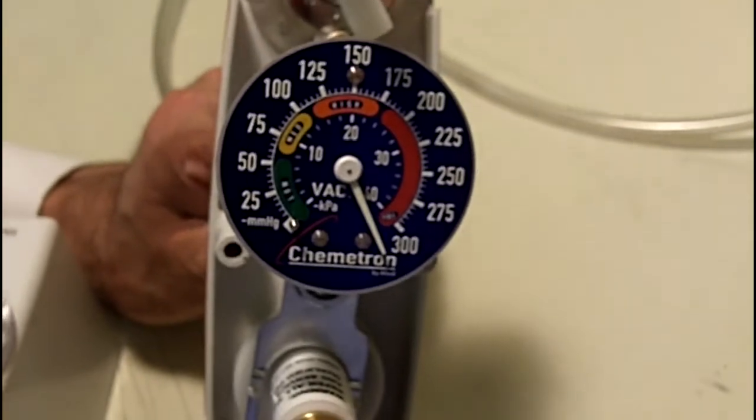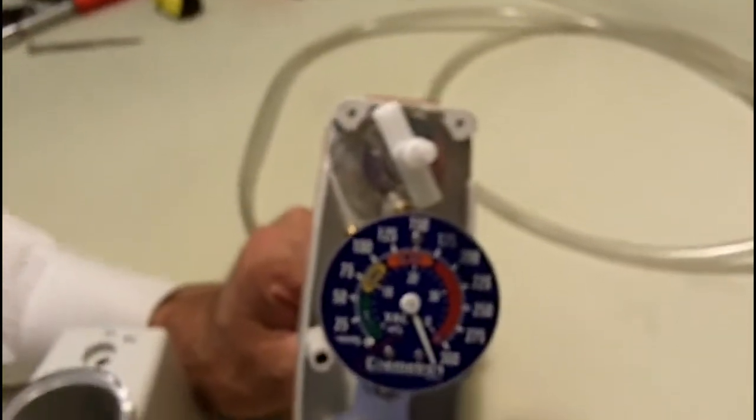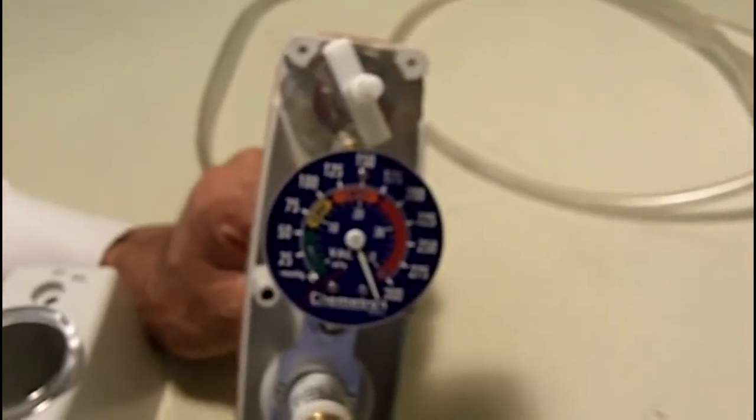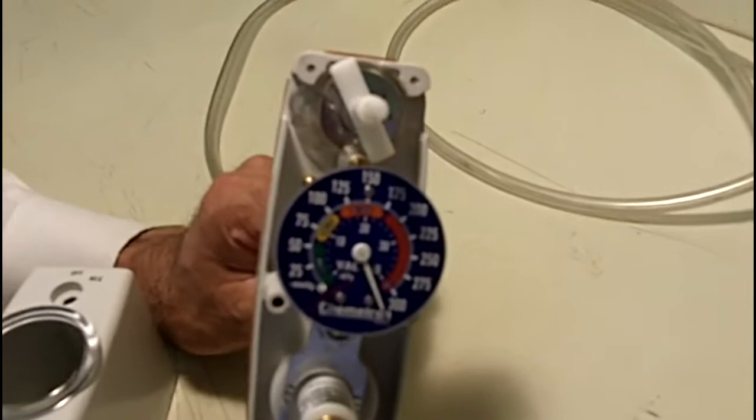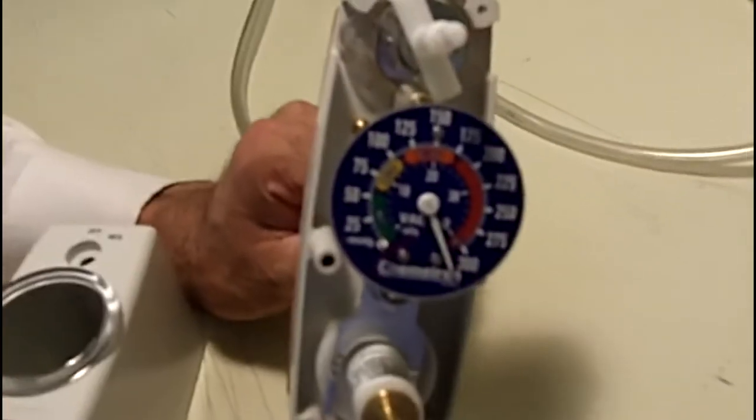And you'll notice that noise. The noise you hear is actually the secondary relief valve engaging. That buzzing sound is a ball that's vibrating back and forth, which is relieving the additional vacuum pressure as well as causing an audible noise.